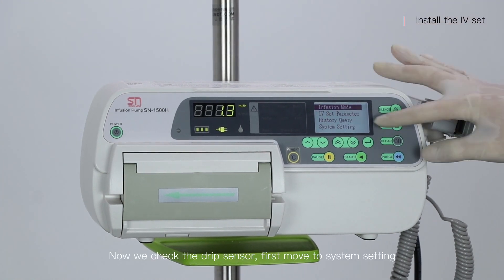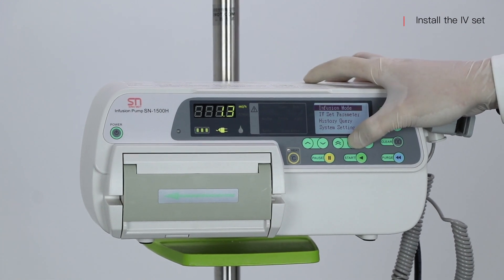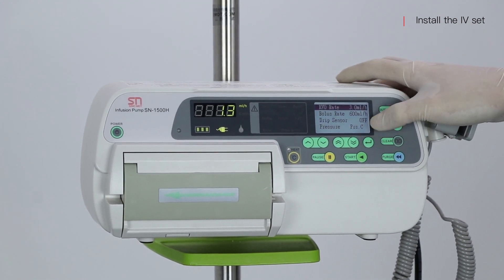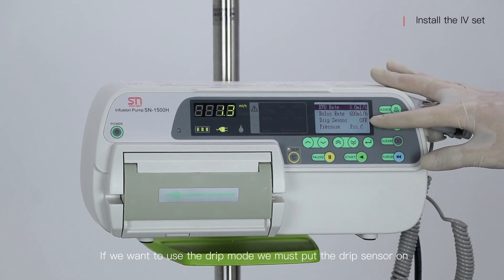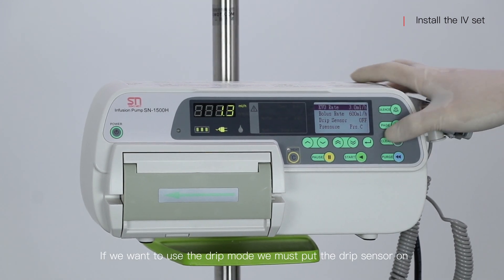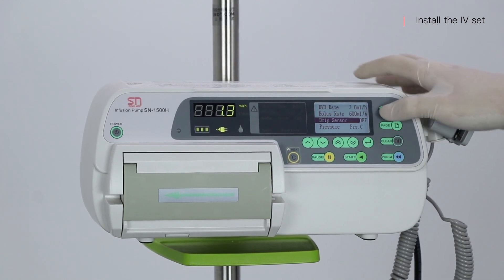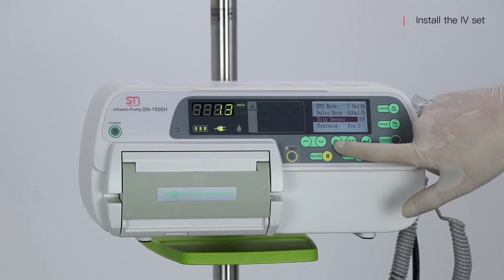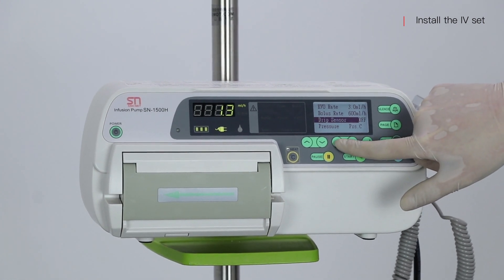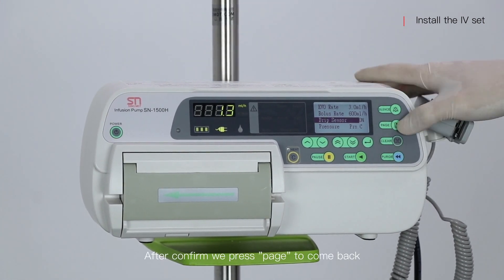Now we check the drip sensor. First, move to System Setting. If we want to use Drip Mode, we must put the drip sensor on. After confirming, press Page to come back.